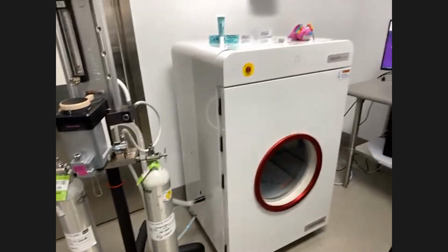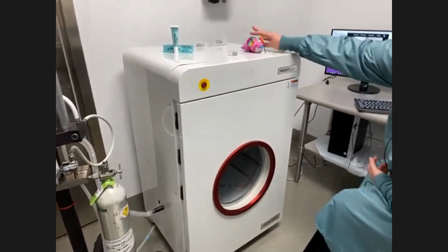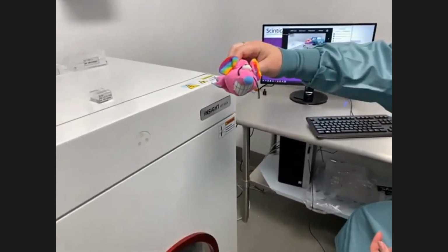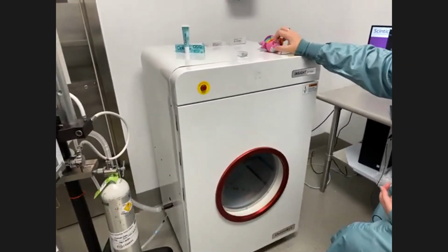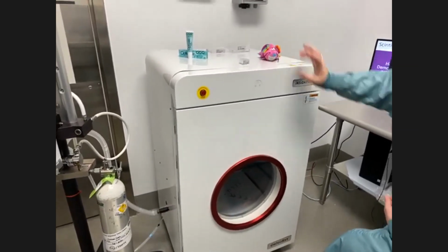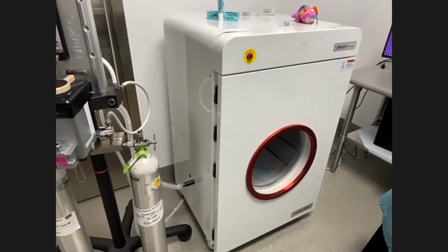We will show everything without the animals in view right now. I will use my friendly little mouse here to show how the animal setup works. And then once we get the animals out, we'll turn the cameras off, but I will be able to share the software on the screen at that point in time.